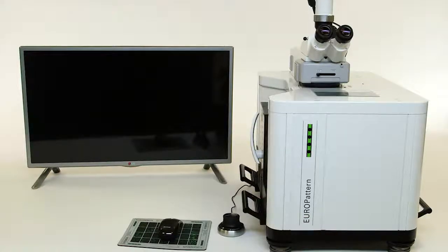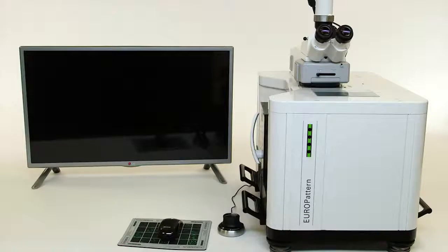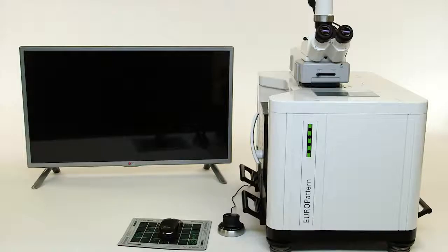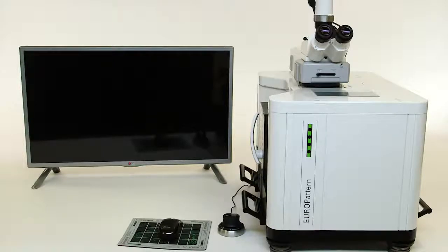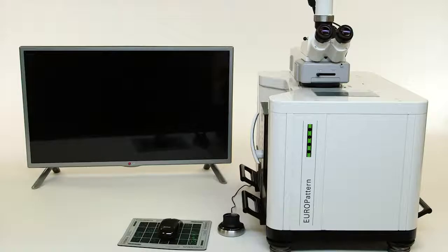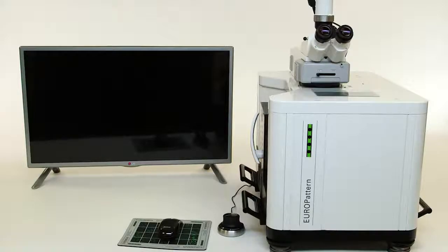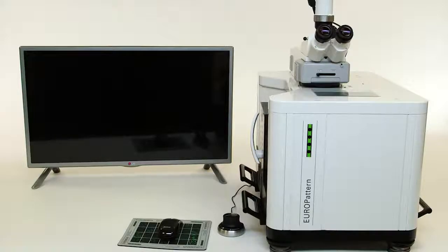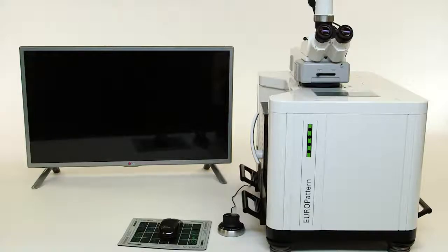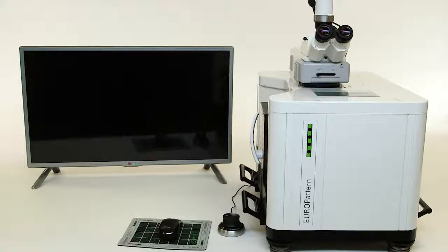Europattern is a sophisticated yet very user-friendly system that offers high-quality IFA evaluation while increasing efficiency, cost savings, and time savings, helping you meet or exceed your laboratory's goals.